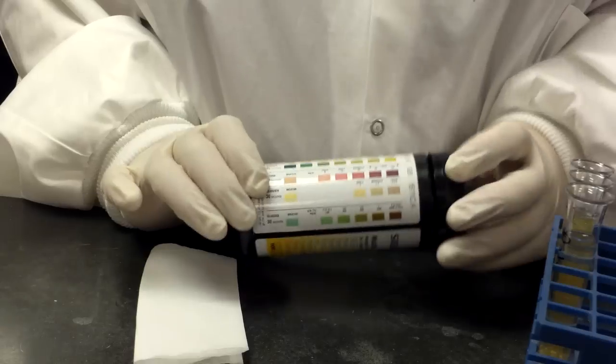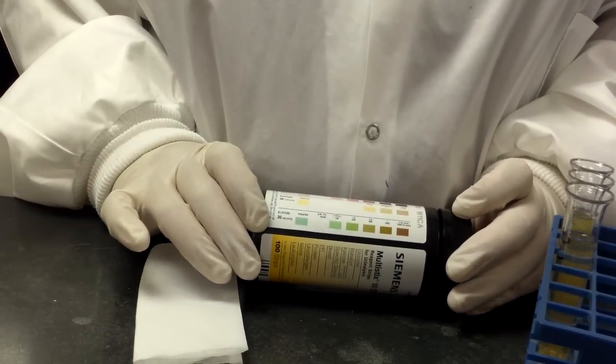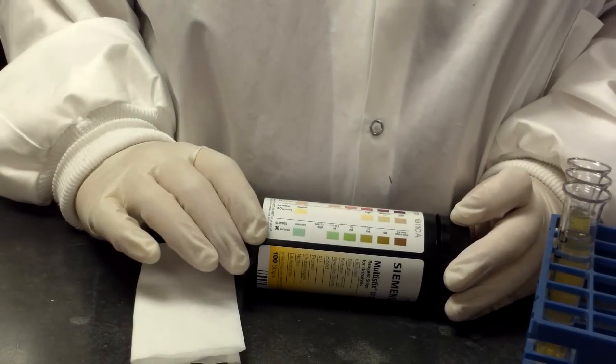This is a manual urine dip and it's not a really complicated procedure. Many doctor's offices do this.